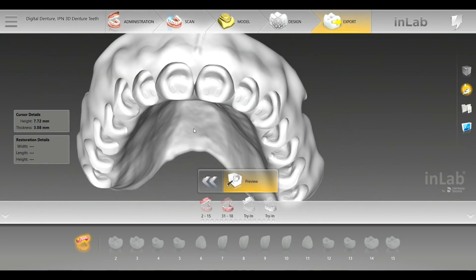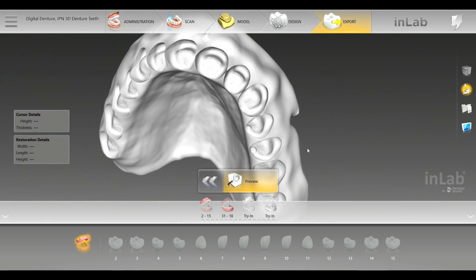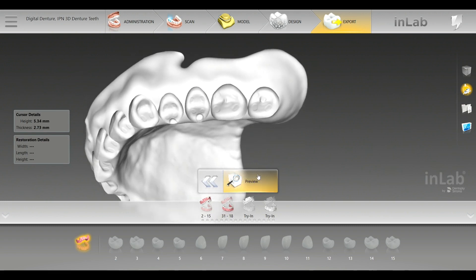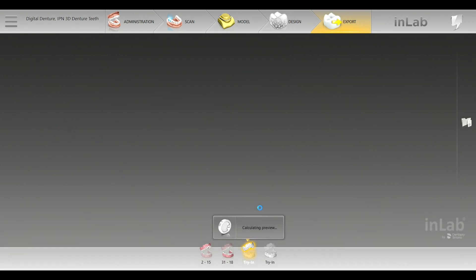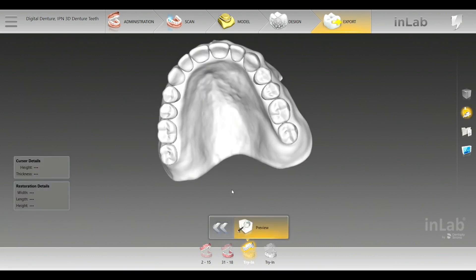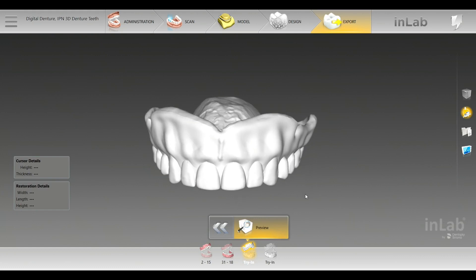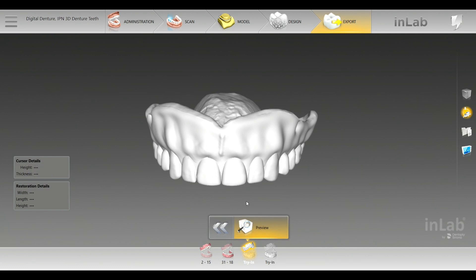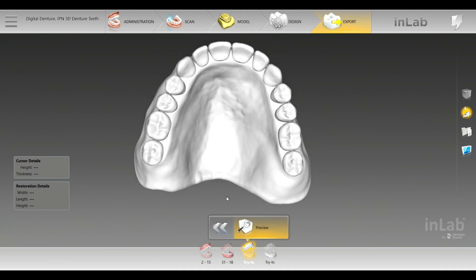See this tooth indicator system — it literally has locking points, and the locking points are just great. Plus it has a huge time-saving feature, because these teeth aren't stuck to wax. Using other software, they're still on a wax card set, so you'd have to sit there and wipe off all the wax — this truly makes it so much easier. You can see the nice indicator slots for the upper. You could basically train anyone to put these teeth in. If you wanted to do a quick try-in or a monolithic, you'll now be able to do that as well. You don't have to go back or create anything else — here's your monolithic. You could also go ahead and give them a secondary backup denture — put some composite on it — and offer that as something else to go along with the package.